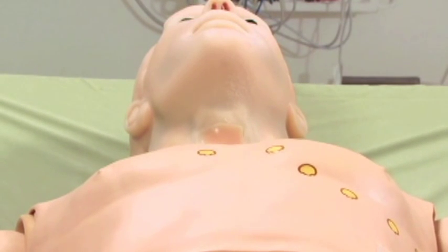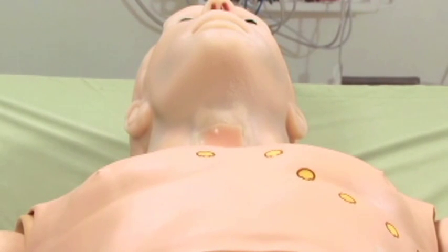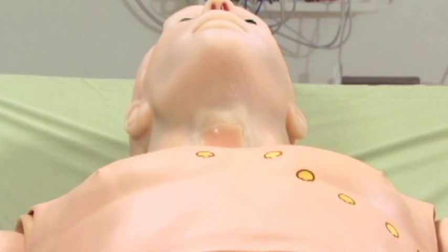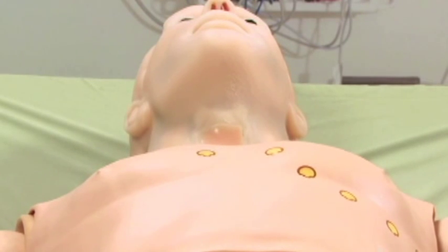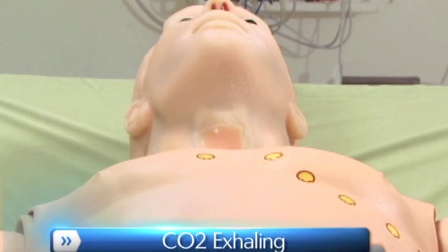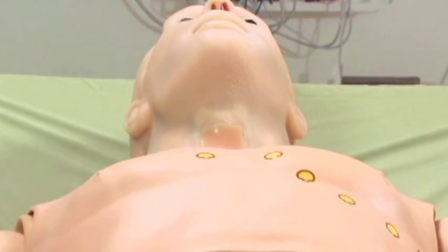This simulator is equipped with the ability to exhale carbon dioxide with each breathing cycle. This will allow providers to use colorimetric devices like the EZCap2 CO2 detector, providing visual feedback about proper placement of an endotracheal tube.